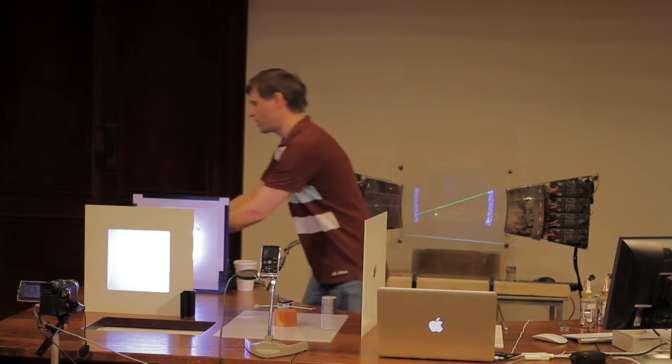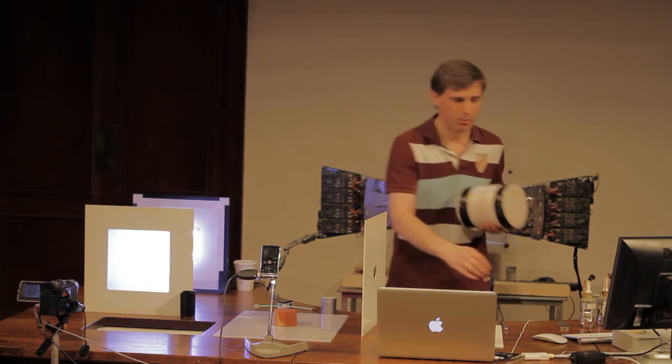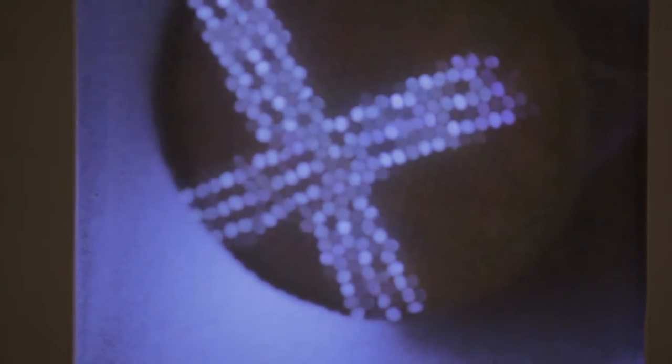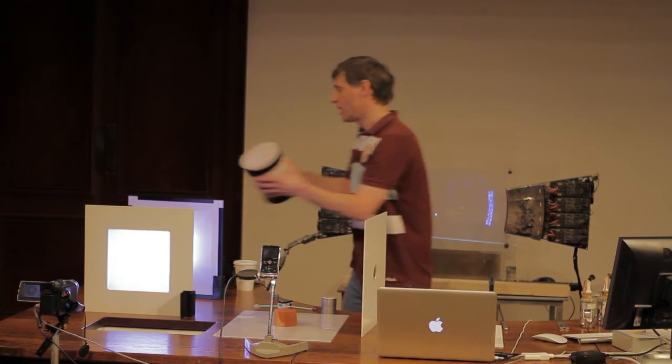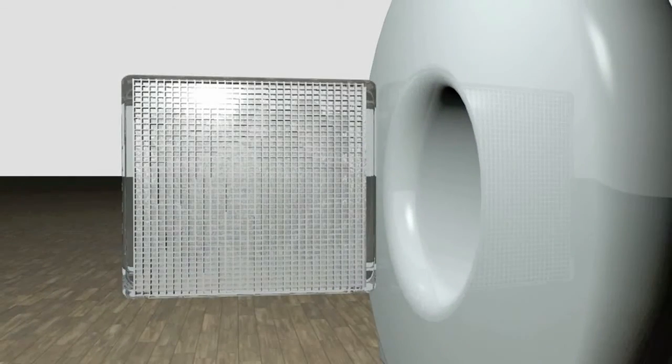So what we need to do is to replace our lens with something else. And what do we use? Well, it's a super high-tech piece of imaging equipment, not unlike this, a big bundle of straws. And if I try and show you how this works by going back to our screen with nothing in particular on it, and I move the source a bit closer so I can sandwich the straws in between, I hope you can see that we do get a picture of that cross. So this is our poor man's lens for X-rays, and that's what we have to use. So let's add that ingredient into our camera, and then we're finished. We've got ourselves a way of seeing X-rays that are coming from radioactivity inside our patient, so we turn this onto our patient, and we see lots of little tiny flashes, each one a radioactive decay inside our patient. And if we build those up over a period of a few minutes, we get a picture of something like this.